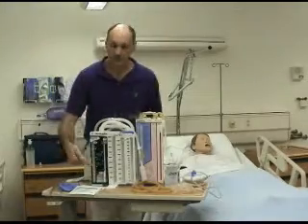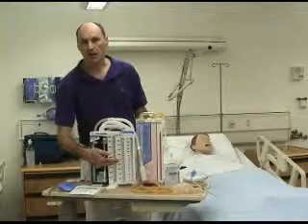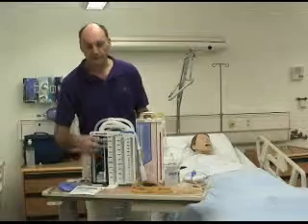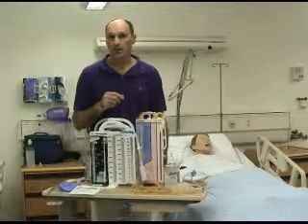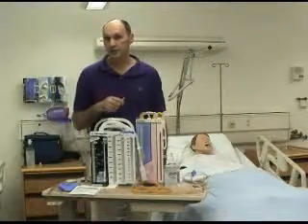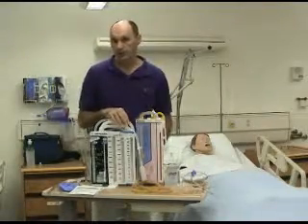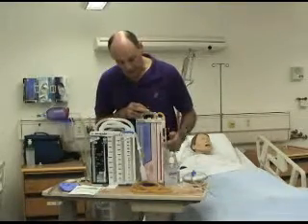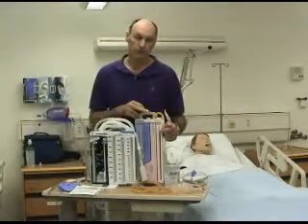Then in your particular scenario you can tell them what type of drainage is coming out and what level the off-going nurse has marked it at. And then you can change that level in your scenario so the students can determine if the amount of drainage is above normal or not. You can either do the drainage with some colored water, or if you want, you can take a little piece of red tape like I've done here and put the drainage to a particular level that you want the students to identify.